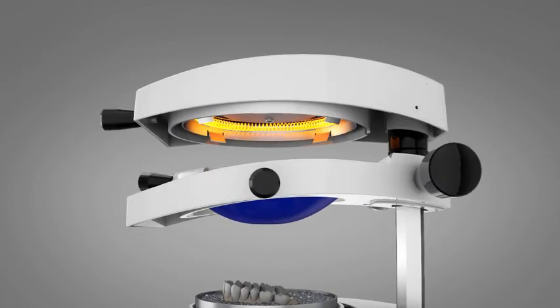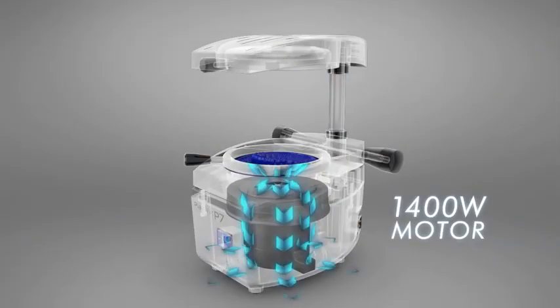To assure a perfect conformation, its 1400 watts motor with automatic start is the most powerful of the market.